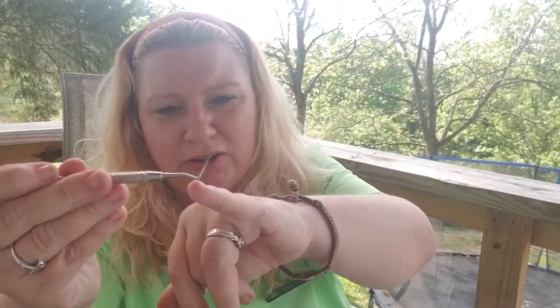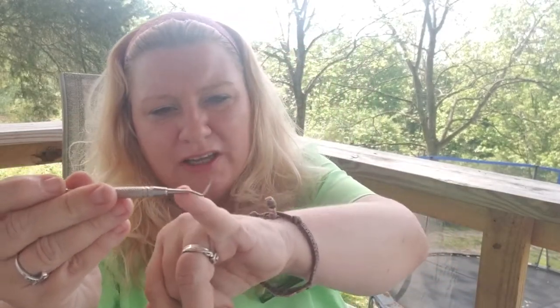You also have an endo spoon. How it's different from the regular spoon is that the working end is longer, so it can get down into the canal and get out the decay.